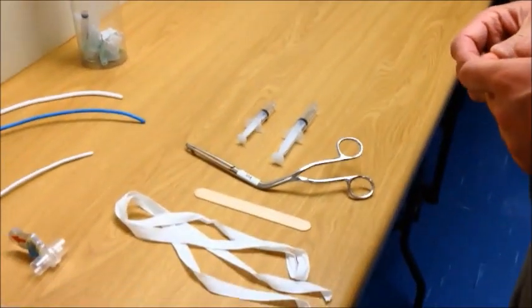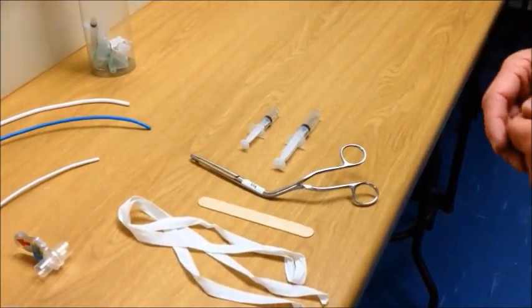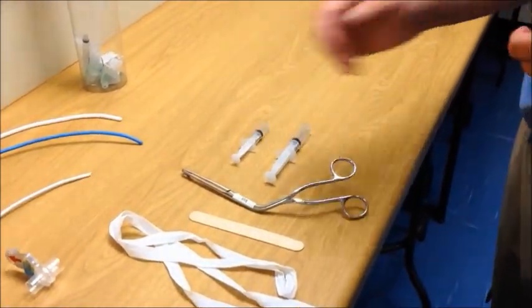Other pieces of equipment that could be of use is a wooden tongue spatula, a long stem McGill's forceps and you should also have your drugs drawn up to the correct dose and ready to use.